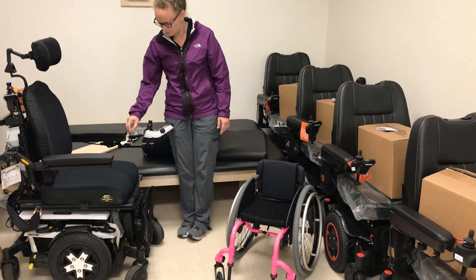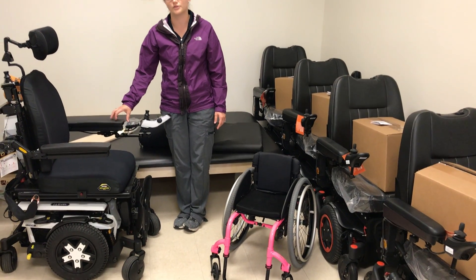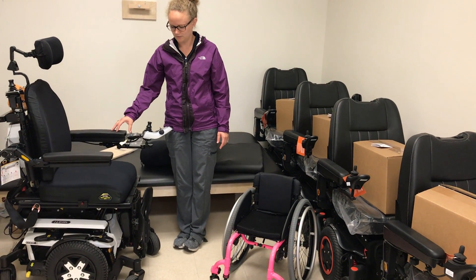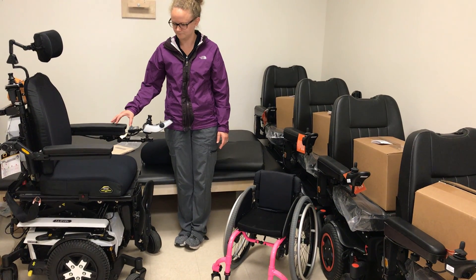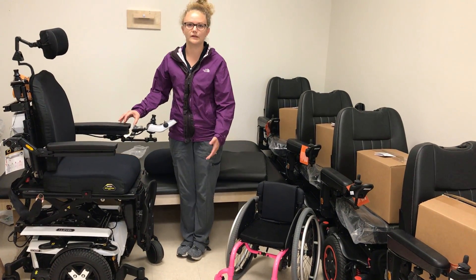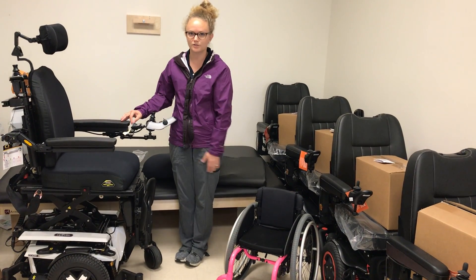I'll show you what it does. Typically the range is 12 inches of height. We're going up — this is great if they want to reach into cabinets or be on level with the adult population.